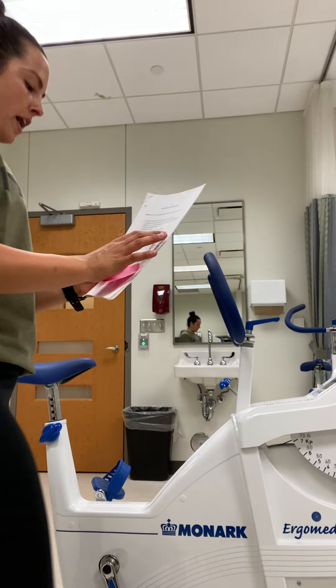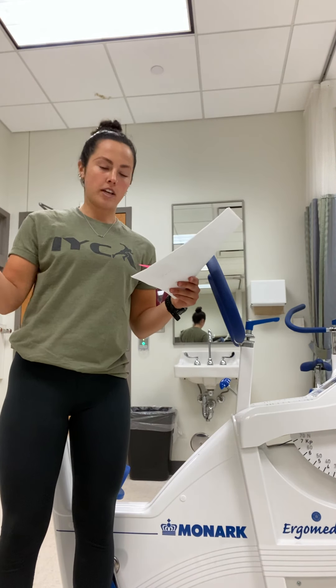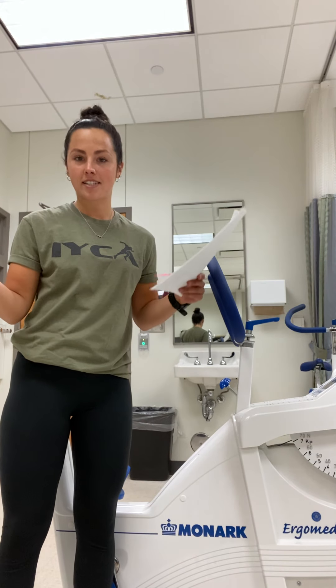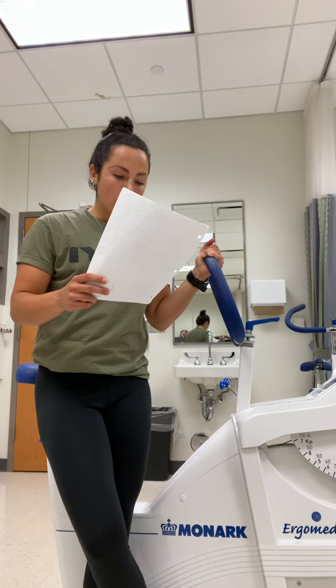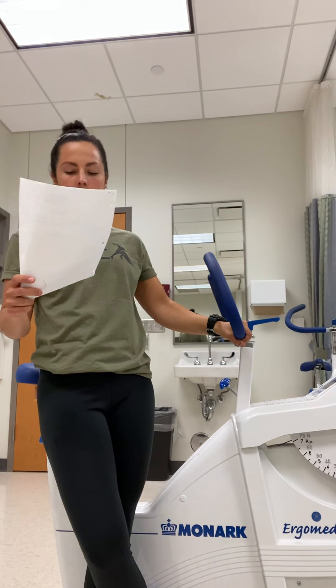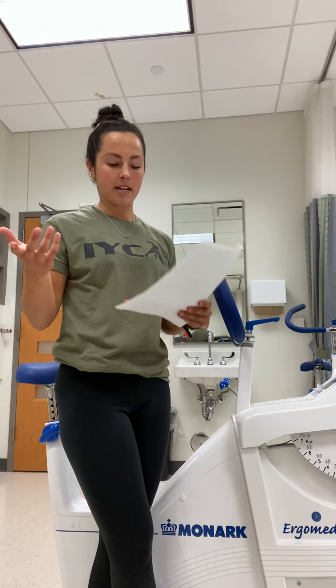If we go back and look at our cycle ergometer protocol, you can see that the table has your stage, the time, and then it says watts. That watts is the intensity that we're working at. But what does that even mean — how do we adjust according to the watts? If watts is our overall intensity, we have to know what to manipulate in order to create that intensity.